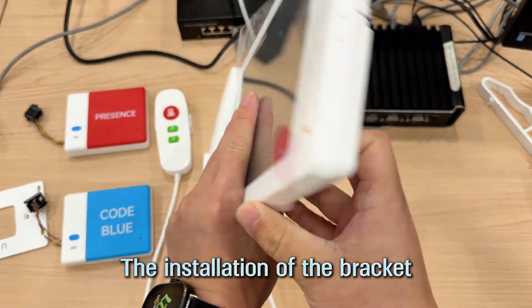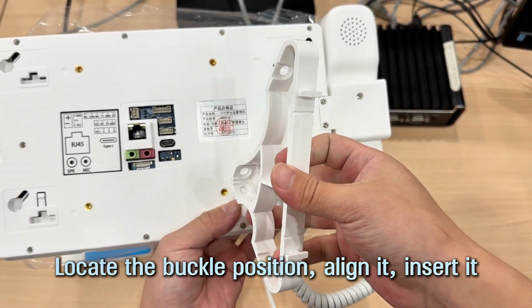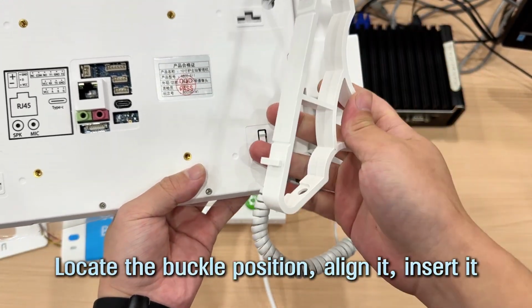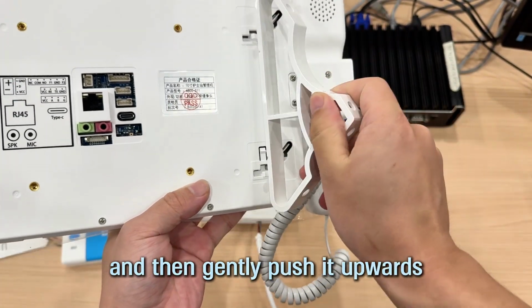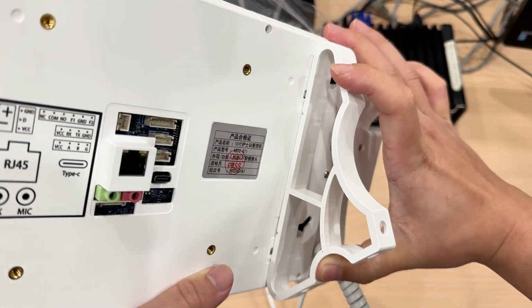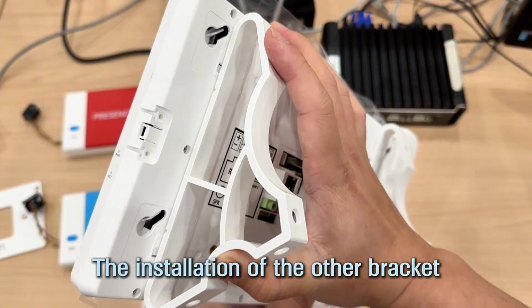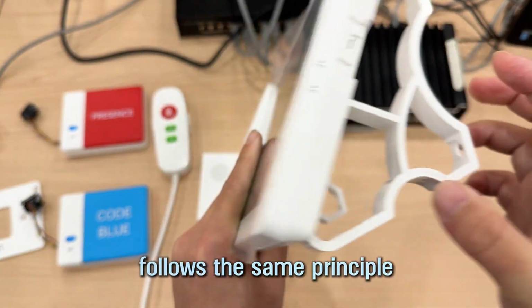The installation of the bracket for the medical care host is as follows. Locate the buckle position, align it, insert it, and then gently push it upwards to complete the installation. The installation of the other brackets follows the same principle.